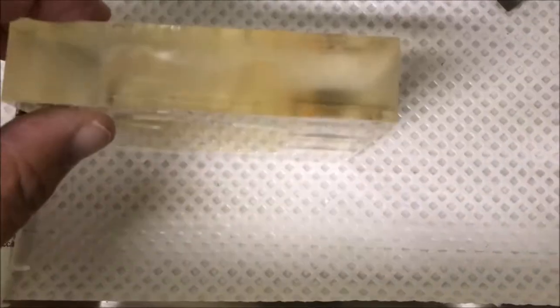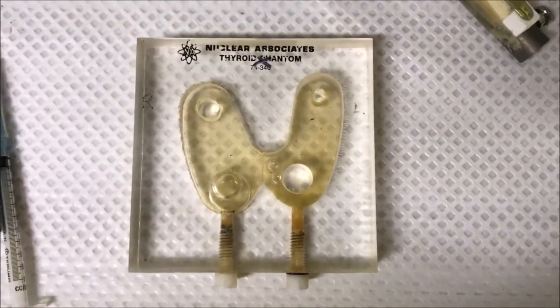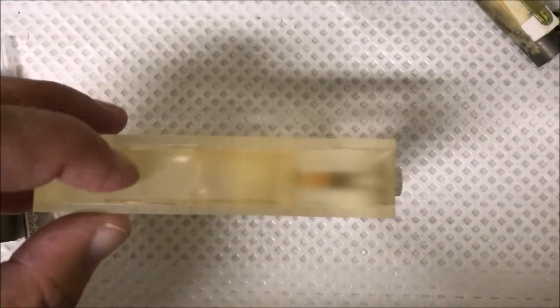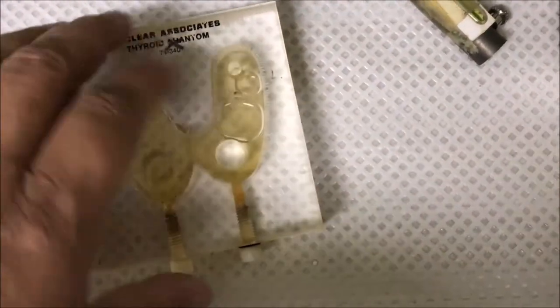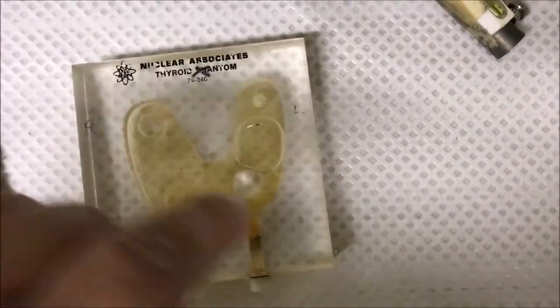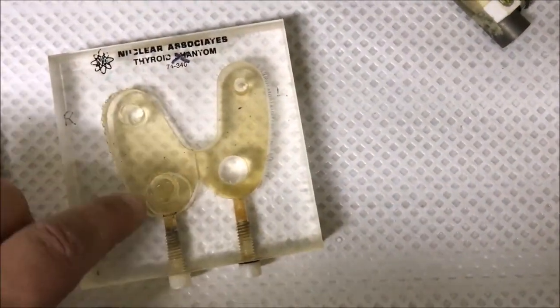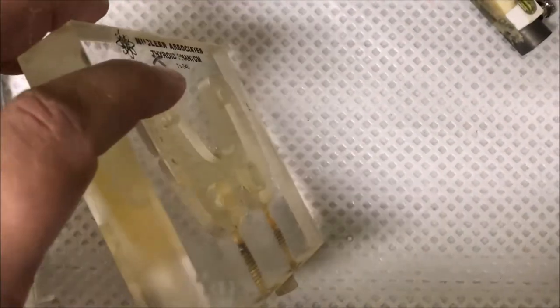This one here — and I'll just turn it over and show you the side view — is actually a partial thickness. What it allows is for activity to drop into it. You can see two sides to this: this side is full thickness, so the air bubble goes the full thickness of the phantom and activity goes all the way through. On this side, if we look at the bubble, you can see it only goes halfway through — so part of it is solid and part is hollow. Either way, this one here is actually partially hollow, creating a cold nodule.